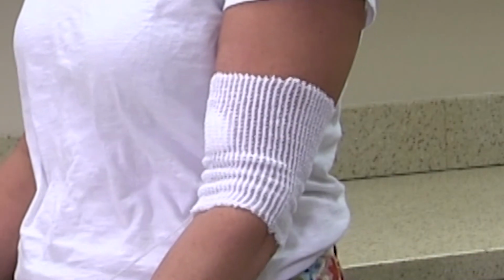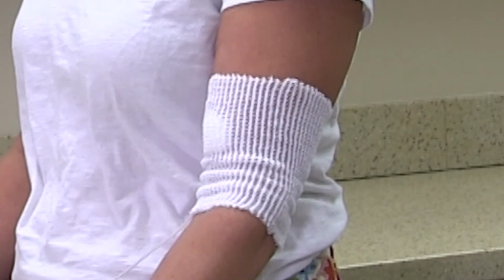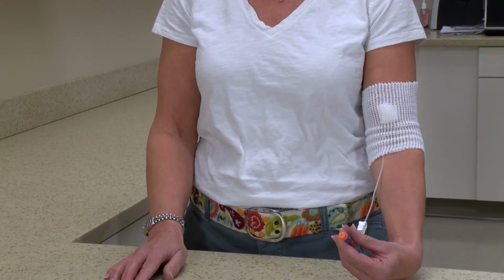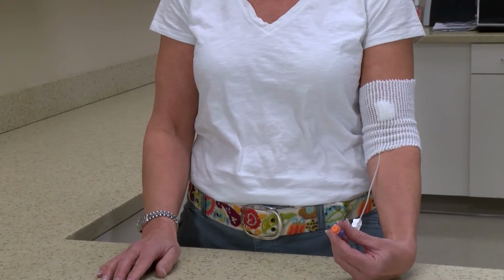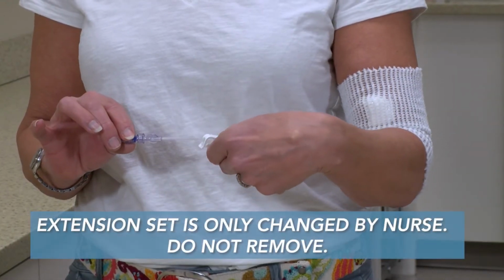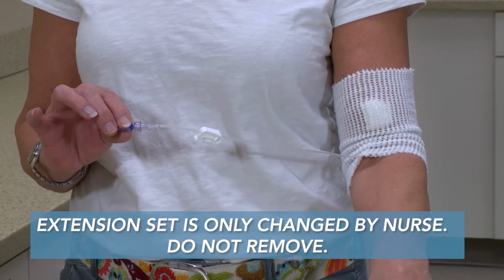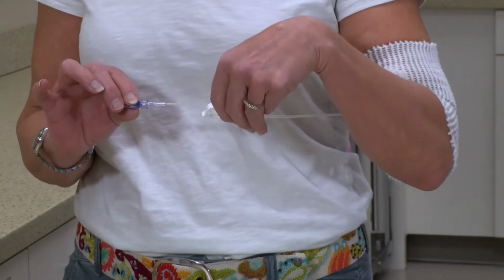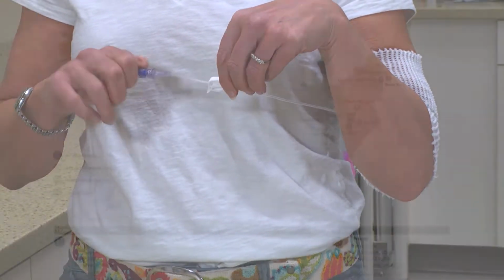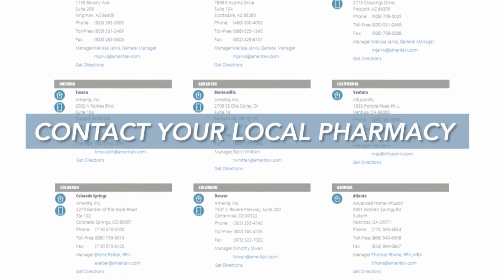It is important that you or your caregiver be able to give your medication as scheduled, which means that you likely will have an extension set attached to the end of your catheter. The length of this set depends on how long you need it to be to administer your medication safely. This extension set will be changed only by the nurse, so take care to not remove it. If you accidentally remove it, make sure your catheter is clamped and contact your pharmacy right away to have a nurse come and place a new extension set.